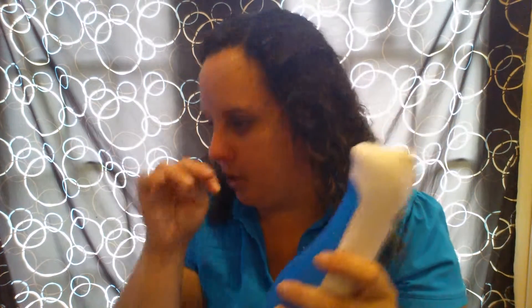And then you have the water flosser itself. It does seem a little bit bulky since it is all one unit, but it fits pretty securely in your hand and doesn't seem too bad — it's a pretty good grip. I feel like my hand should close around it a little bit more, but I'm sure it's not much heavier with the water in it, so that shouldn't be too big of a deal.